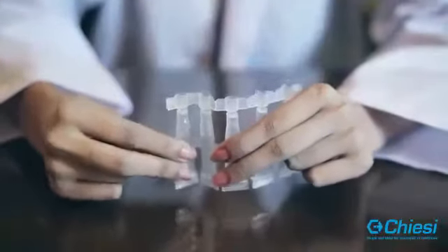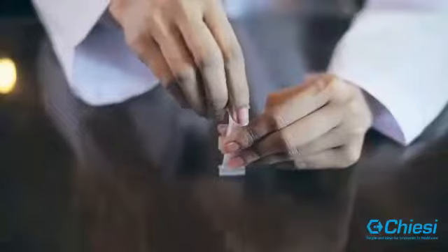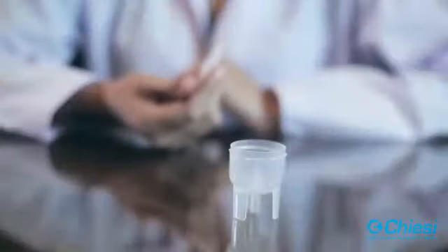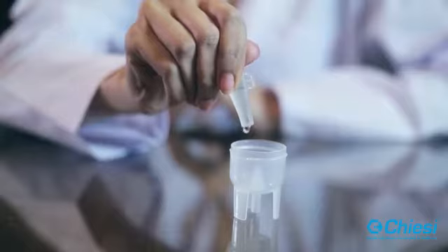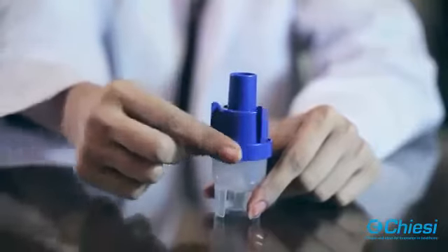Tear the foil pack. Bend the monodose vial back and forth. Separate the monodose vial. Open the monodose vial by twisting the stopper. Gently squeeze the monodose vial content at the prescribed dose into the medicine chamber. Saline solution can be added to the medication. Ensure 3 to 5 ml of solution is in the medicine chamber.